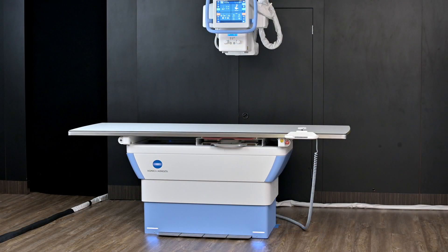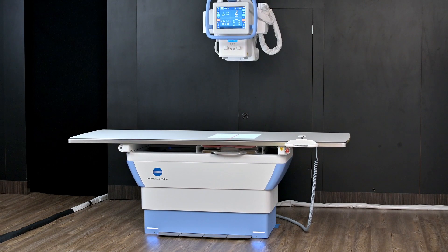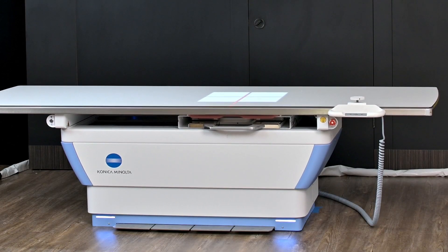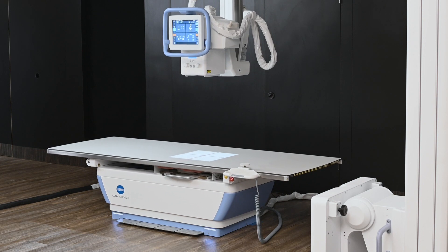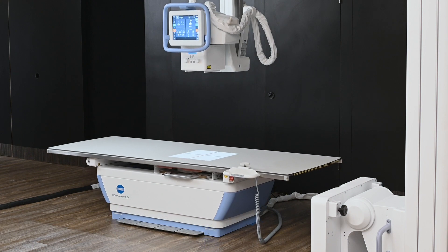Some of the great features of the Konica Minolta Flex overhead tube crane is its capability to manage the table either remotely or table-side with the technologist. The table is 94 inches in length. Its highest height is 36 inches and its lowest is 21 inches, making patient onboarding very easy. The table can hold 770 pounds of lifting weight, 1,400 pounds of static weight, and the table width is 34 inches. A great table with lots of functionality.